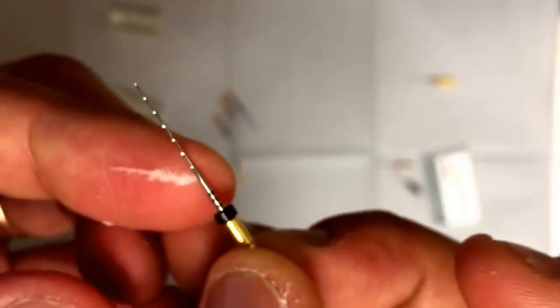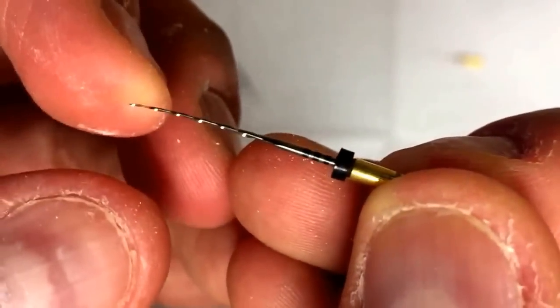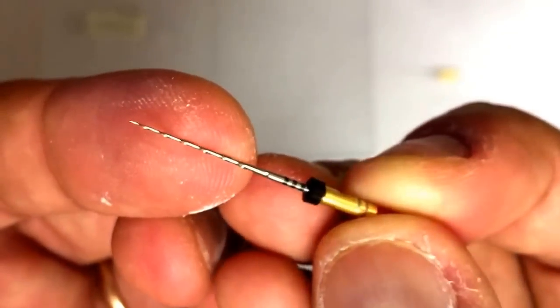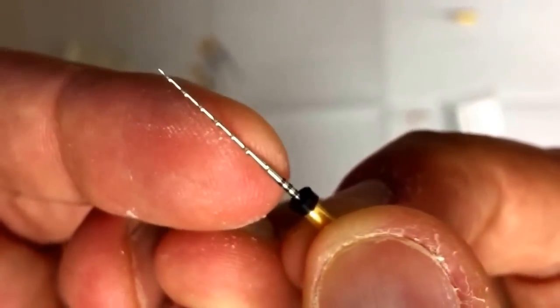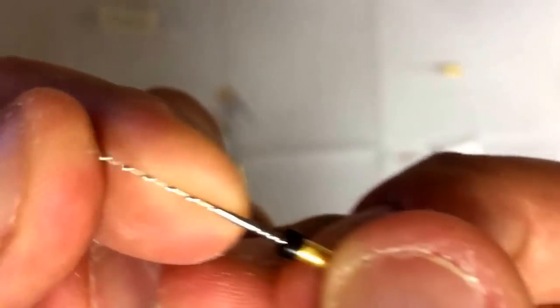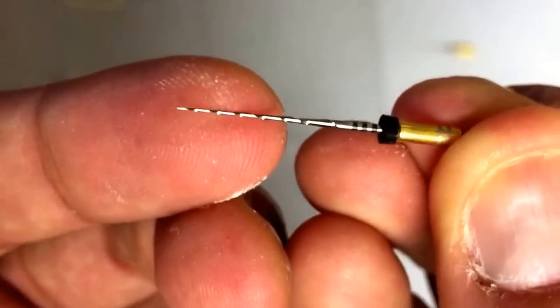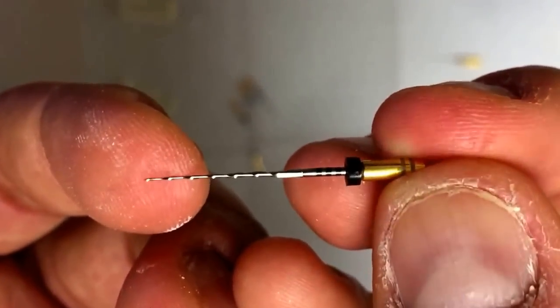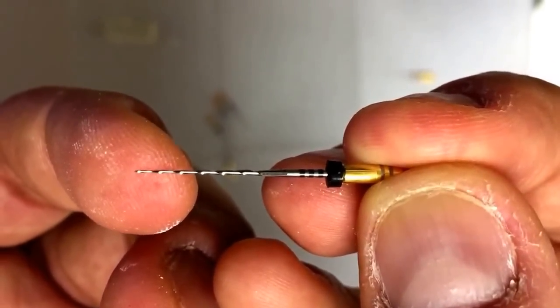So the initial early review is that these files are definitely stiffer, a little more aggressive. I need to see how they handle in the tooth. They're pretty stiff — they get locked in at the RPMs recommended. I don't know how the 06s are going to perform; they're really stiff. You can't compare them to the heat-treated alloys because they look like they're not heat-treated. It might be the older style metal. That's my early assessment.